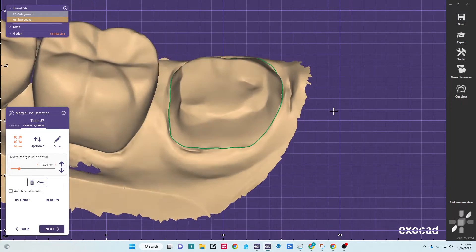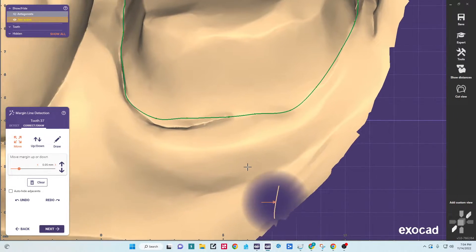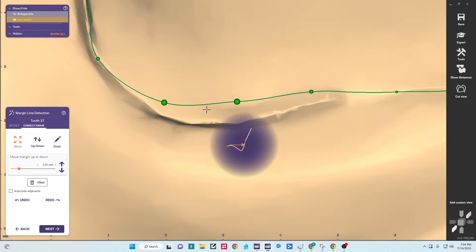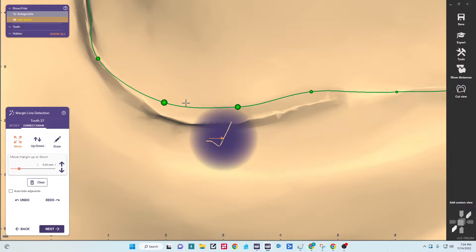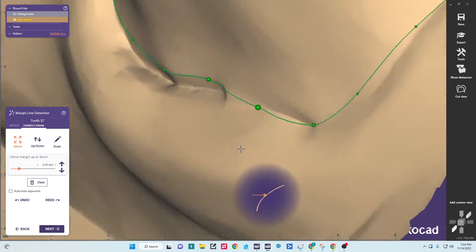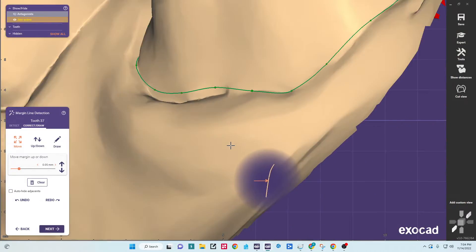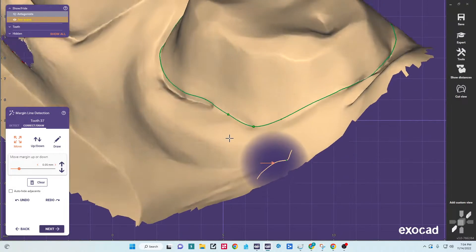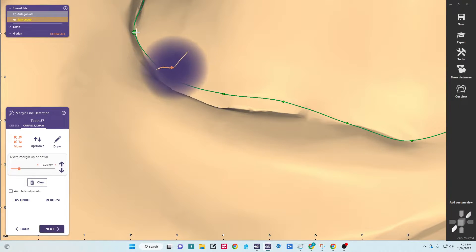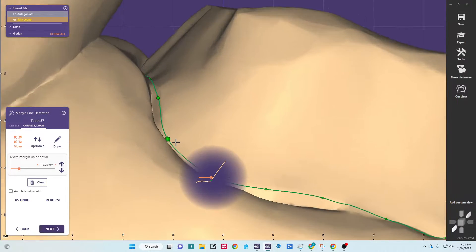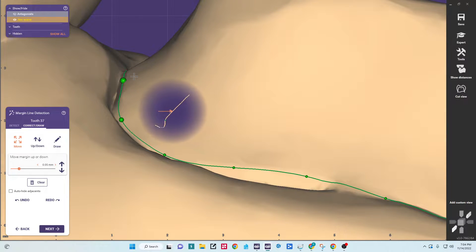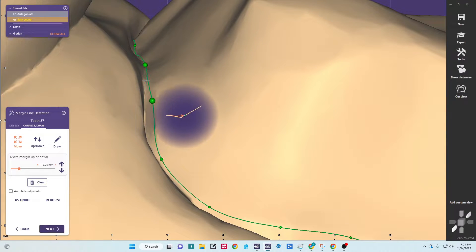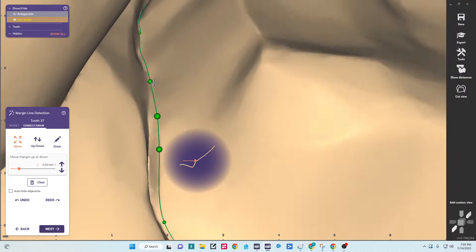Okay, so once I have a rough margin trace then I'll zoom in and pull my points. There's areas that are difficult to tell where the margin is, I'll turn sideways, alternate between a sideways and top-down view to get my margin exactly where it goes. Now in this case you can see where the margin comes down and then the tooth drops. If I need more detail I'll click to add a point.